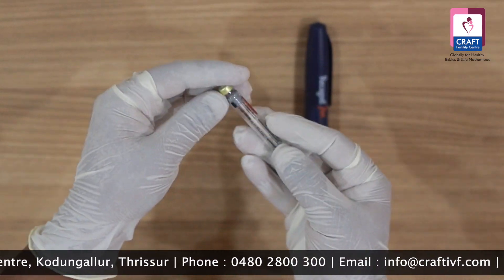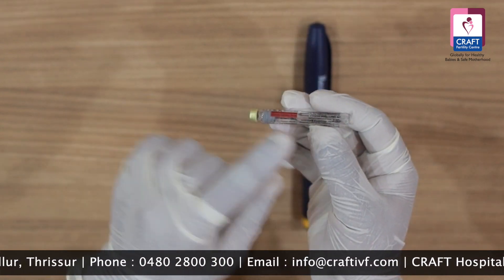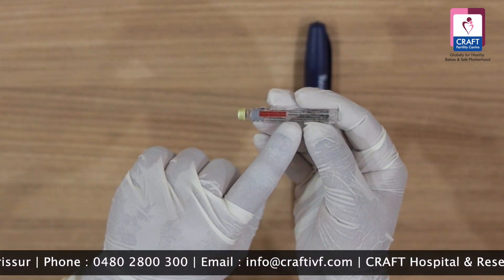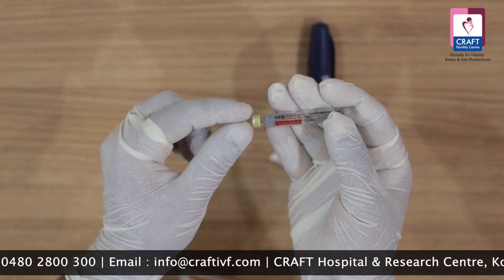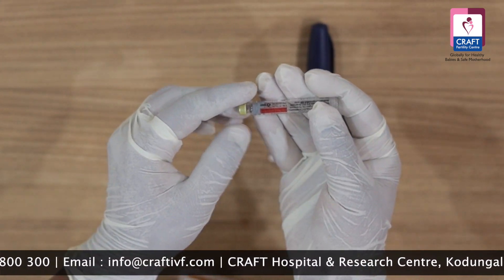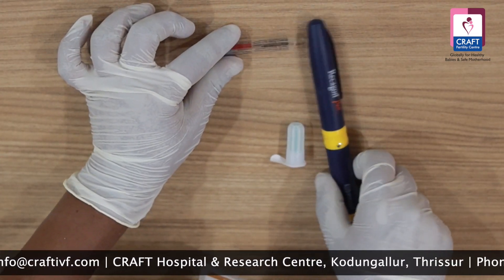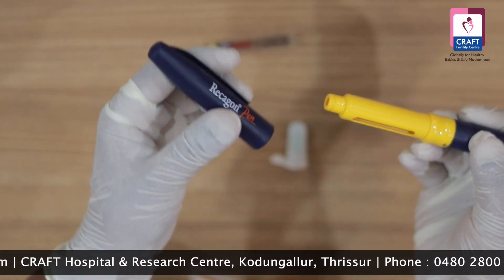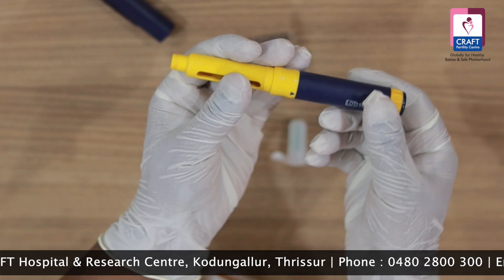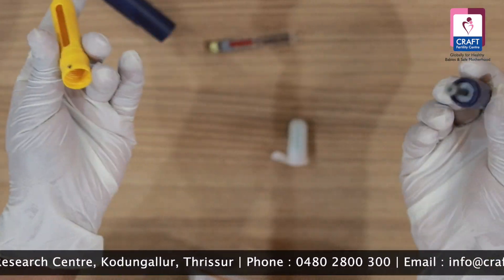I am going to take care of the pen injections. First of all, this injection is loaded with the medicine. I am going to show the pen — this is when the cap is removed. We have to remove this pen cap. This is how we put it in the pen.